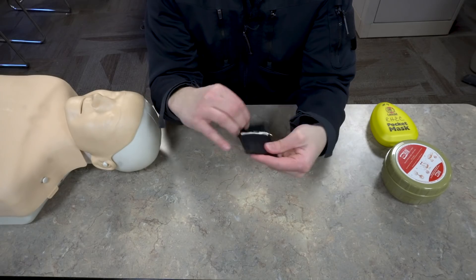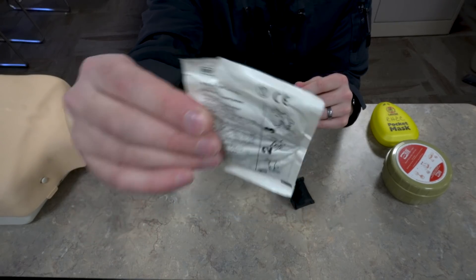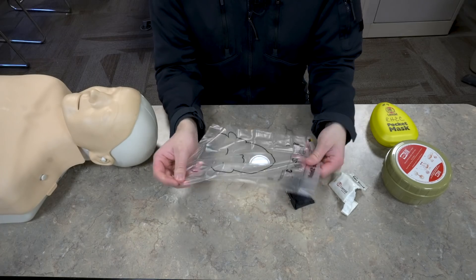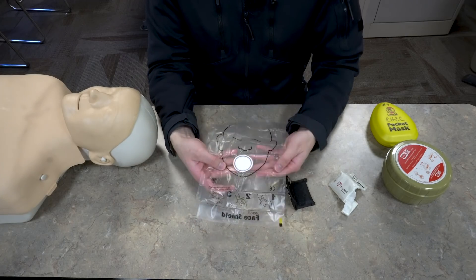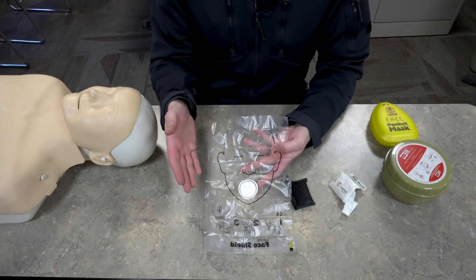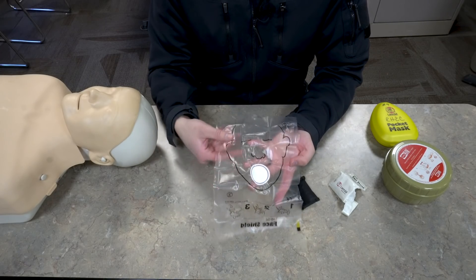The face shield is a small plastic sheet that will go over the patient's face. It has little instructions on the back on how to apply it. When you open this up you can see this is really rudimentary — it's got a visual of a face so that tells you exactly where to put it, and little instructions down there. For somebody that really hasn't received a whole lot of training this can be a pretty good option. This right here is a barrier to keep any viral or bodily fluids from coming in contact with your skin, though it is a pretty permeable cotton material so I'm not sure how much it will actually stop if it's really saturated with vomit or blood.